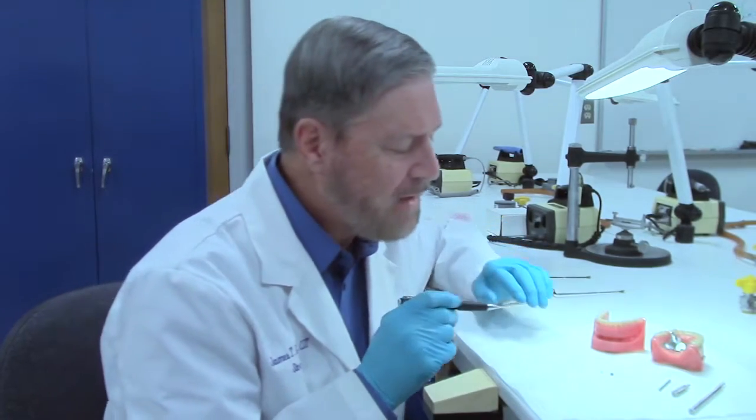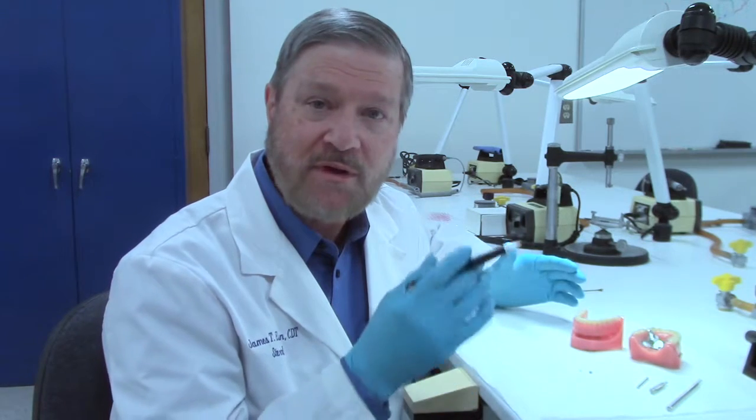Today I'd like to demonstrate for you how to change an ERA male. The ERA males are nylon and so they do wear out over time and they need to be removed and replaced.